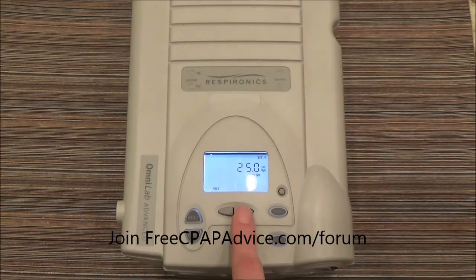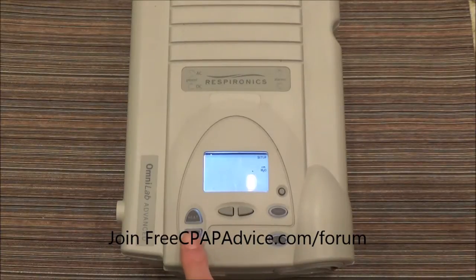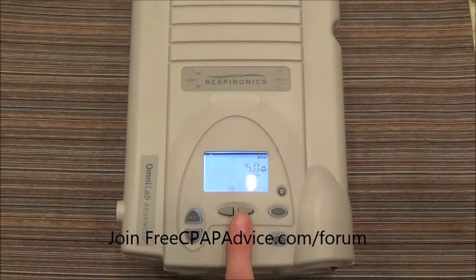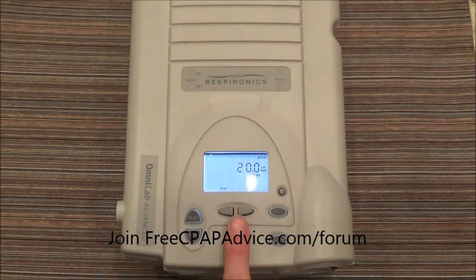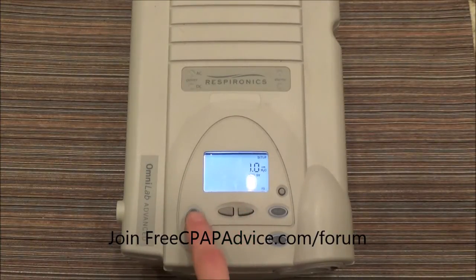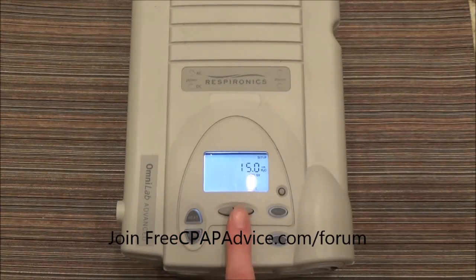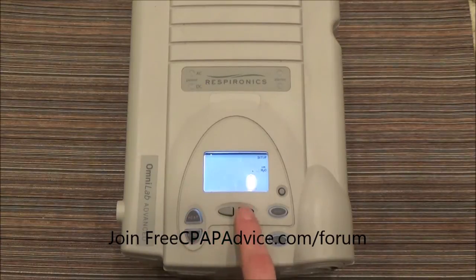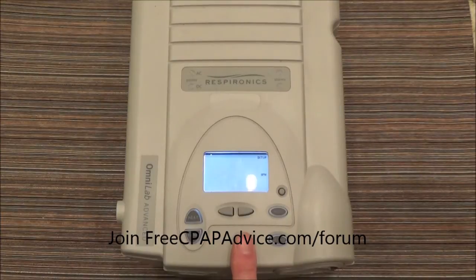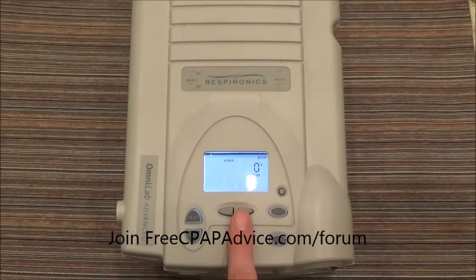Hit the right-hand button and it goes right into setting it up. This is a typical setting, but if for some reason the doctor wanted a lower pressure, that's how you do it. Advance to EPAP Min, EPAP Max, pressure support — usually pressure support minimum is like four or something, and pressure support max is typically as high as it would go. Set to auto, or you can set it to breaths per minute, but it's called an Auto SV for a reason — so auto. Then you have your flex settings, rise time, all that stuff.